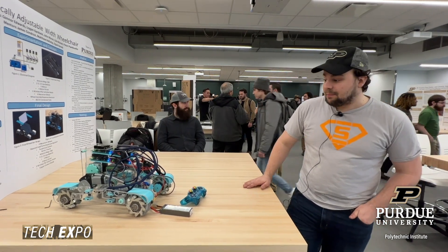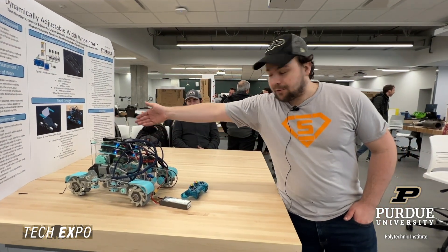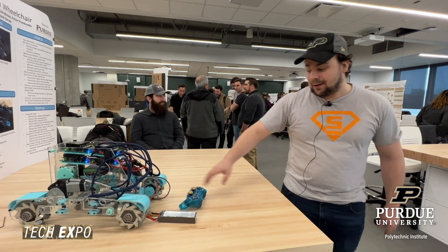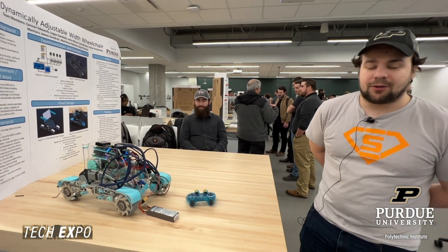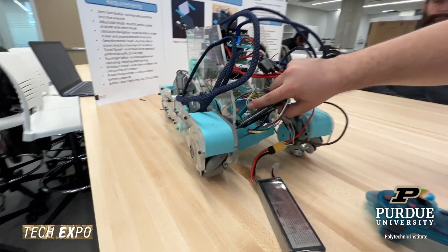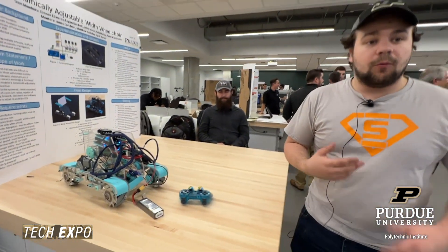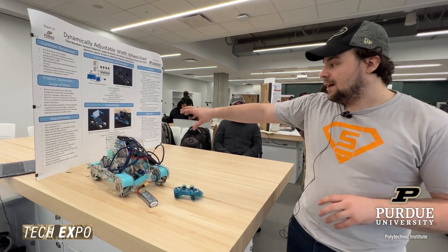Another significant challenge was managing all the wiring — four motors worth of wires, two wires per motor driver, grounds, and signals for the PS2 controller. This was a big issue we overlooked throughout the design. We 3D-printed connectors to make connections to the Arduino more secure, which helped keep wires from pulling out. However, the wiring is still bulky, and the next team will need to figure out how to properly route and mount wires within the chassis.